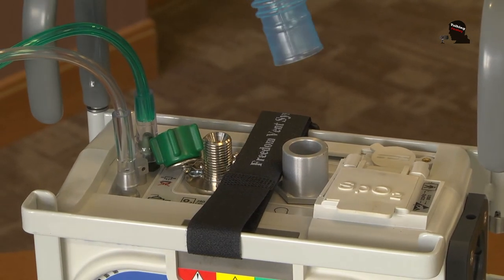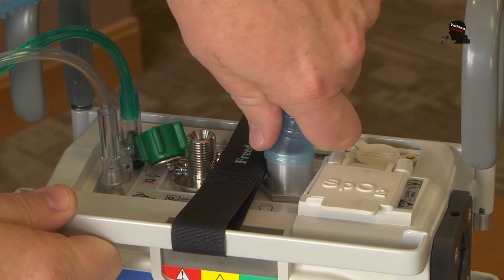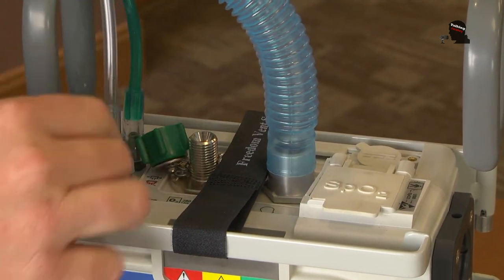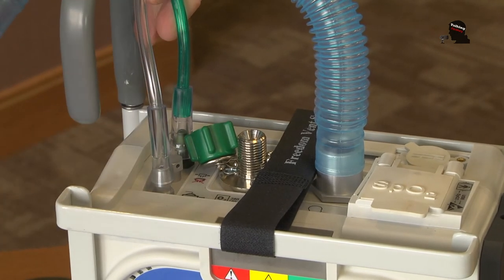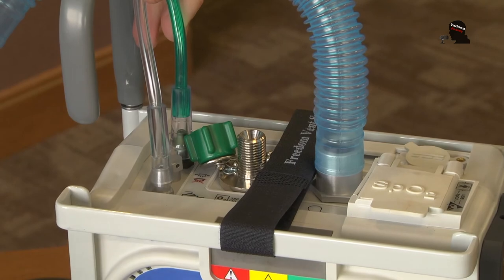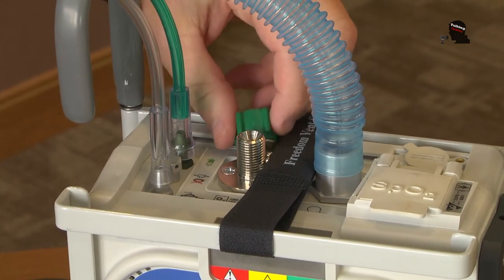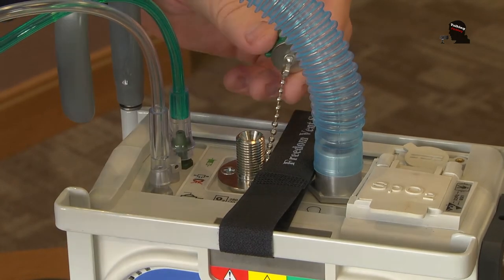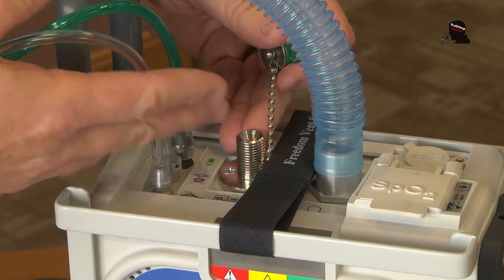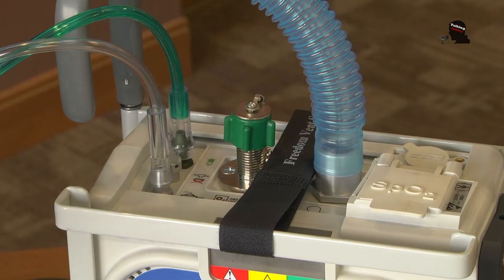The piece of equipment — what we call the circuit — the oxygen tubing that provides the air connects to the top. We have a couple of sensor tubings that go in here and sense the pressure in the patient. If we need to suction somebody or if we have a leak somewhere, that's what these are for. If we want to apply more than 21% oxygen, we have a long oxygen tube that can hook right on and gives them plenty of oxygen.